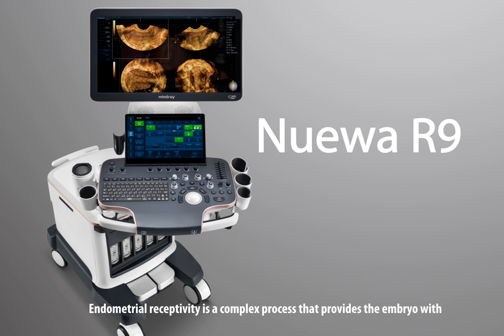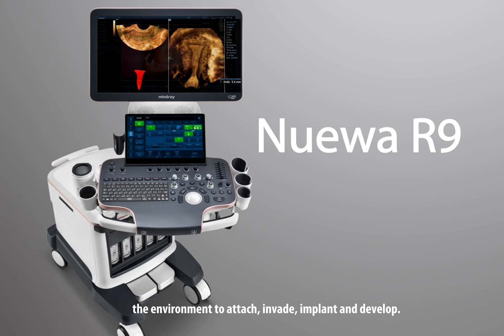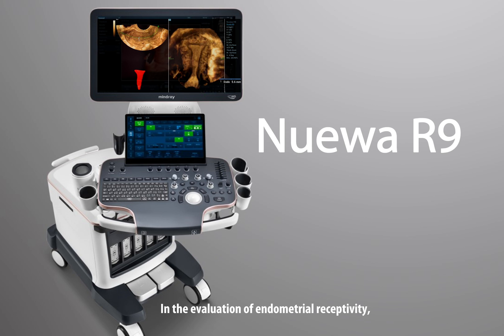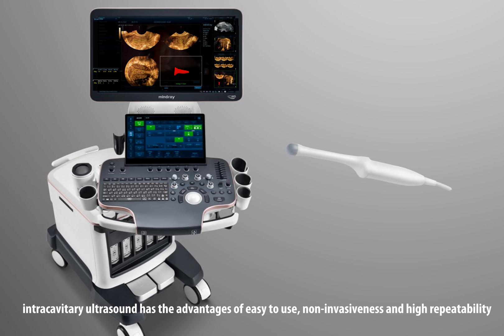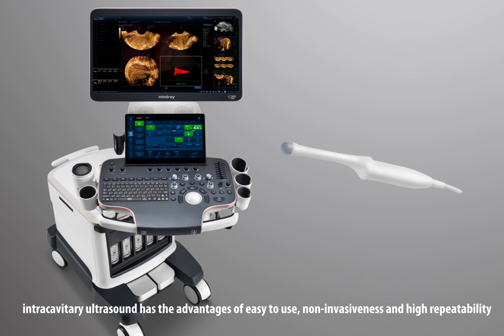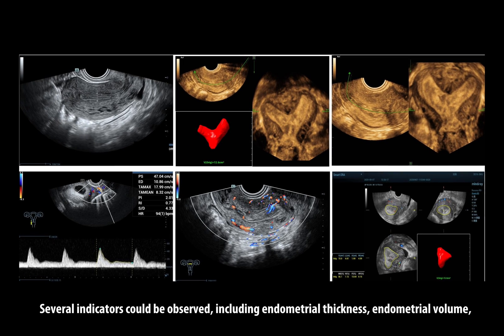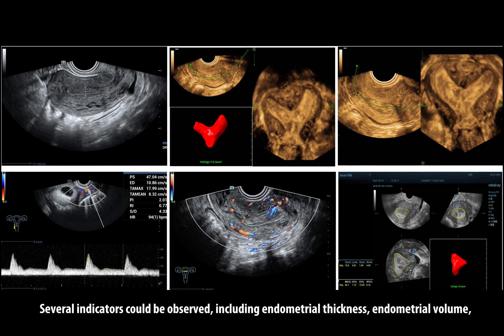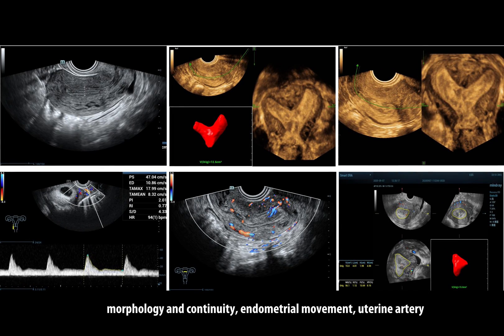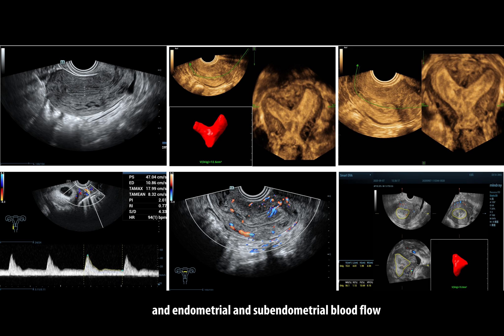Endometrial receptivity is a complex process that provides the embryo with the environment to attach, invade, implant and develop. In the evaluation of endometrial receptivity, intracavitary ultrasound has the advantages of easy-to-use, non-invasiveness and high repeatability. Several indicators could be observed, including endometrial thickness, endometrial volume, morphology and continuity, endometrial movement, uterine artery and endometrial and sub-endometrial blood flow.